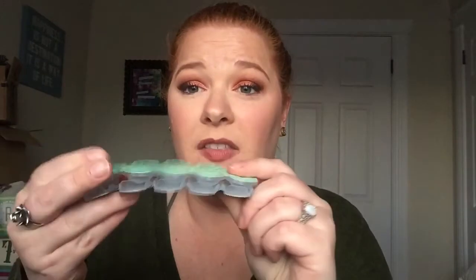They are dailies, and they come in boxes like this — there are 30 in a box. So yeah, 30 contacts. You know the saying 'you get what you pay for'? That's true with these contacts.